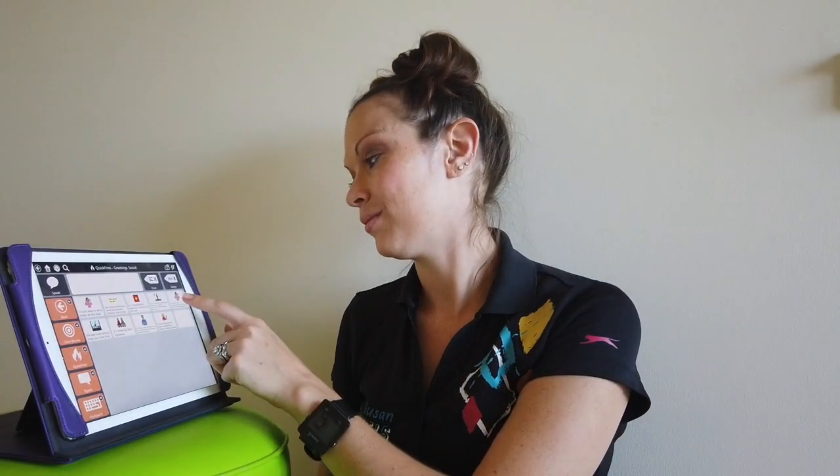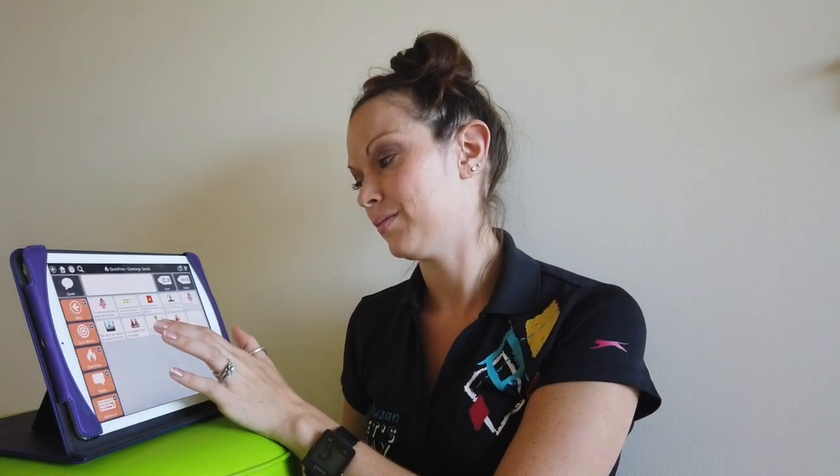AAC isn't about knowing where the buttons are. It's about communicating effectively and efficiently. So it's important we expect our children to do the same. Obviously, I've pre-programmed much of this to make it faster and smoother. The app I am using is Snap plus CoreFirst. It's made by Tobii Dynavox. I like using it with my children who are just starting to communicate with high-tech devices.